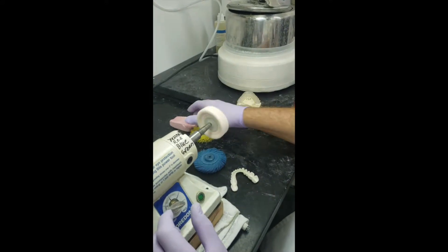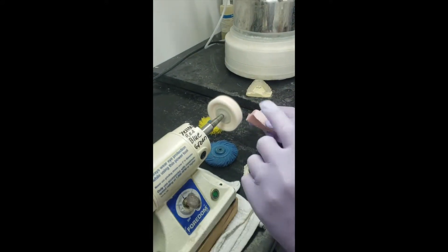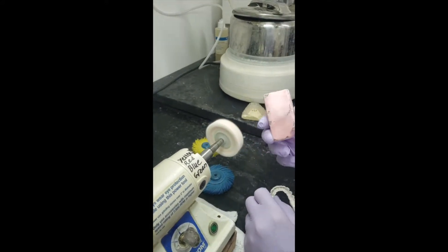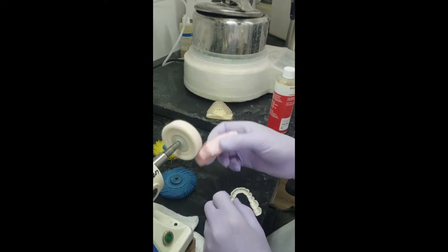So rag wheel comes with the kit, but a regular rag wheel, you can run it a little bit higher than top. This is our high shine block as you can see, well used, it really works nice.